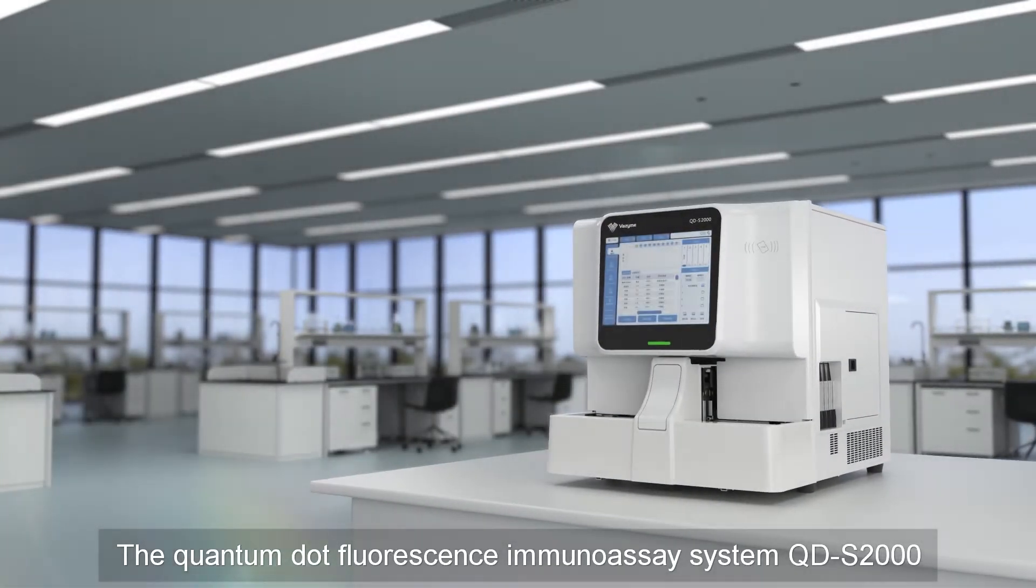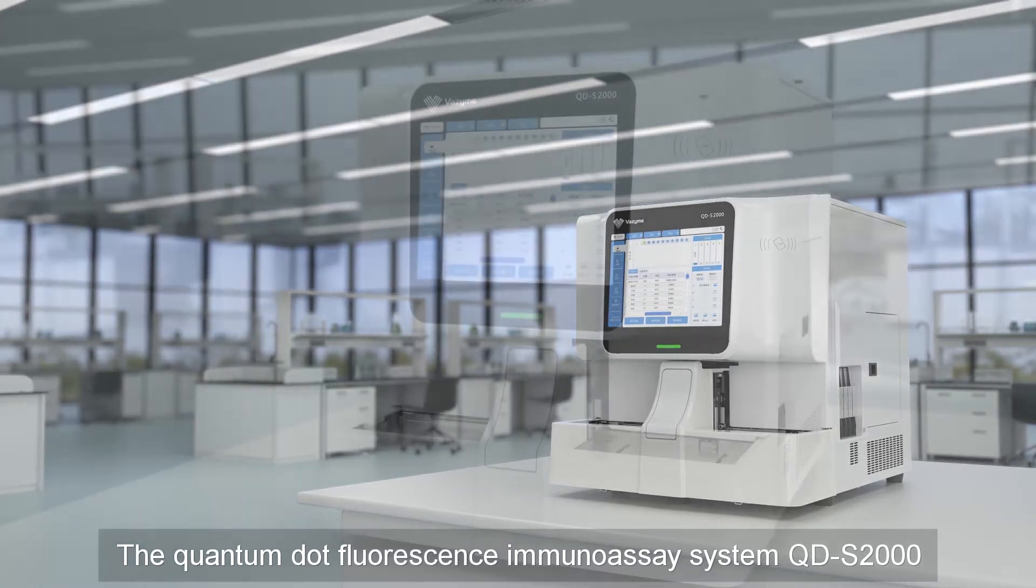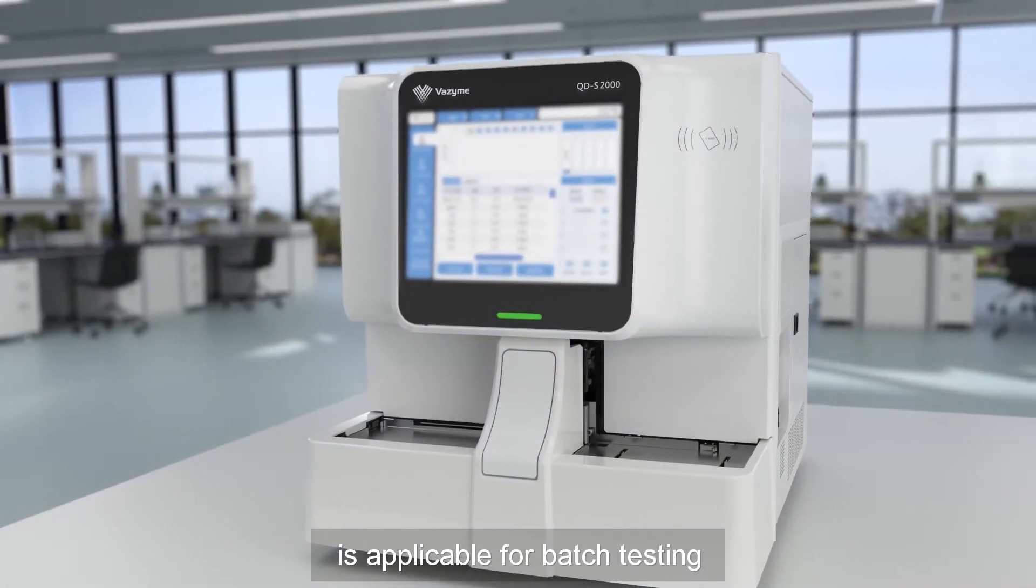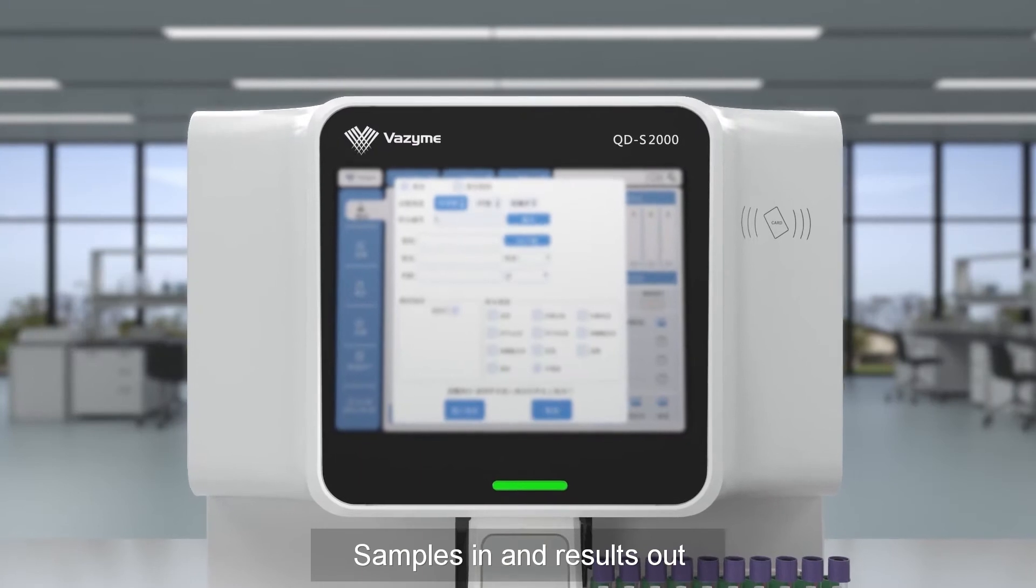The Quantum Dot Fluorescence Immunoassay System is applicable for batch testing. Samples in and results out.